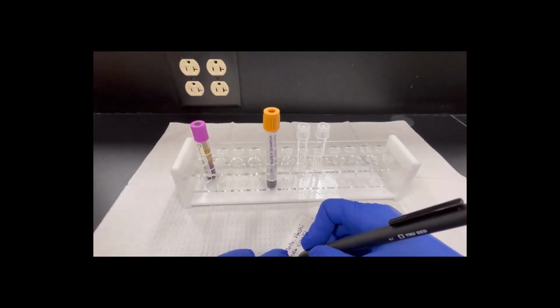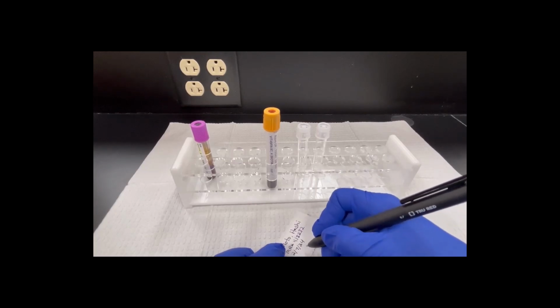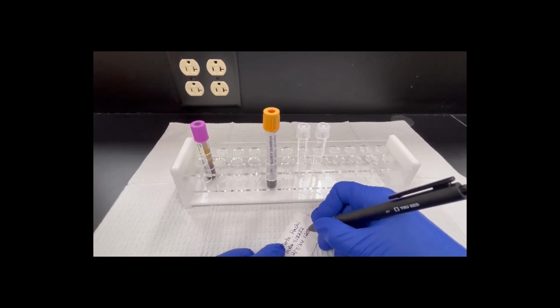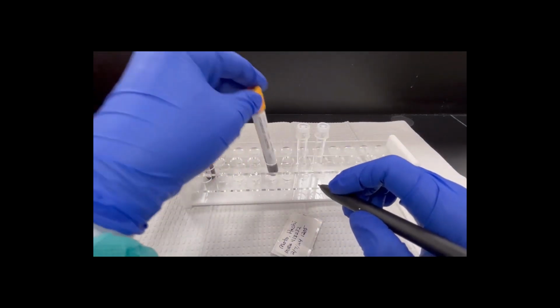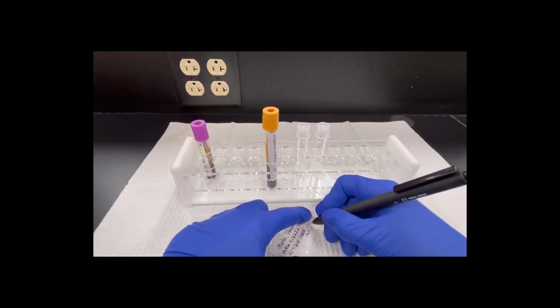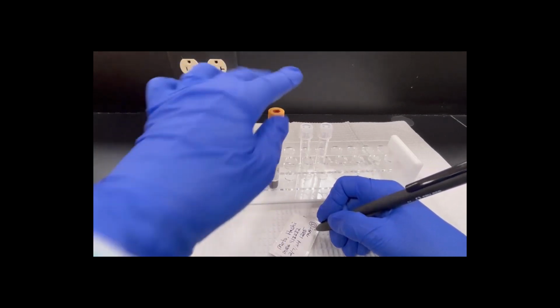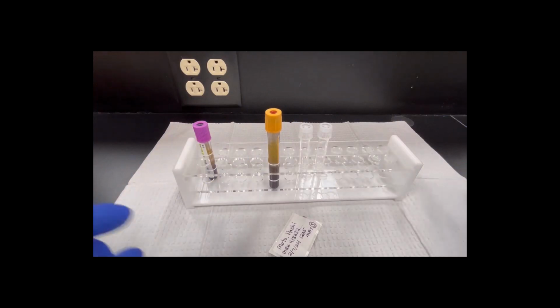So today is 2/7/24, and the time is now 1:05. So this was drawn at 12:05. And then the phlebotomist's initials, MAT in this situation is our phlebotomist. So I'm going to write M-A-T, and now don't forget that last piece I have to write is an S with a circle, because I told you, right, this is a serum tube. This is a serum separator tube. I let it clot, so therefore I have the serum on the top.